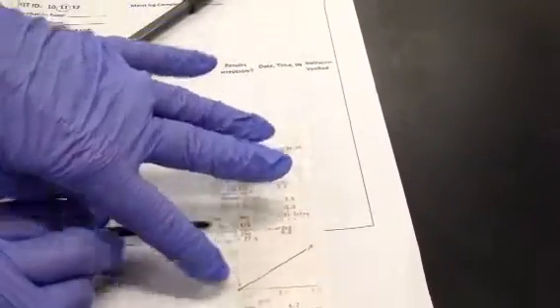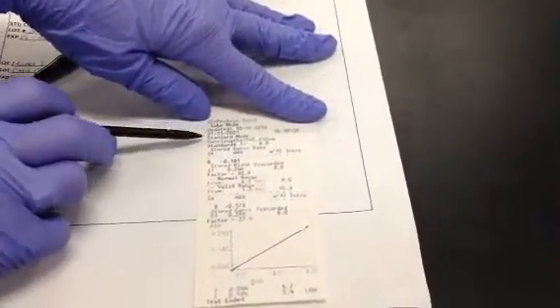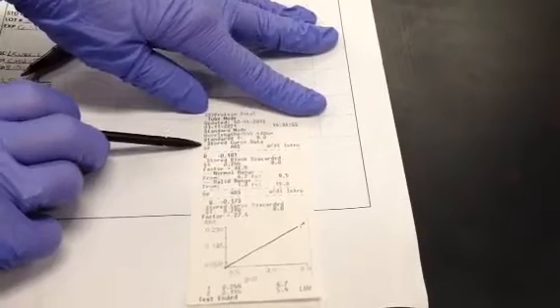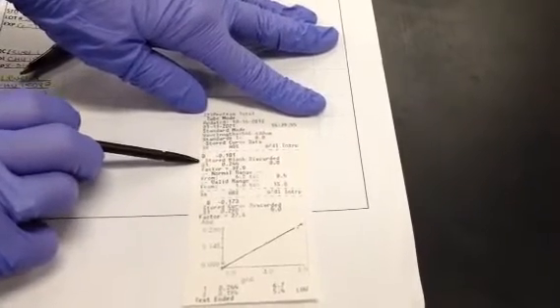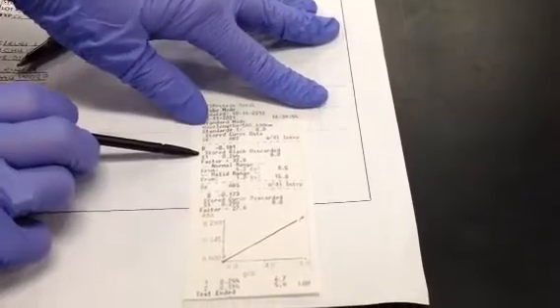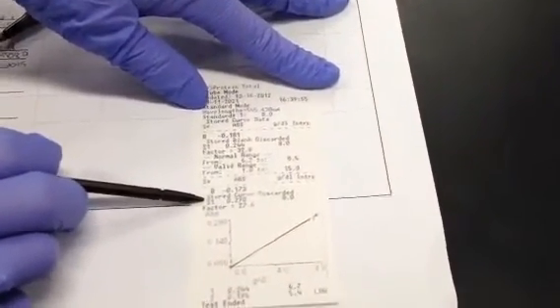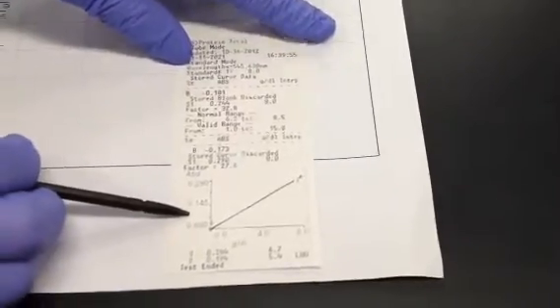This is a header that is showing me basically columns. So I have a total protein with my wavelength. It is telling me that my stored blank was discarded and my stored curve was discarded. So I know this is my curve.